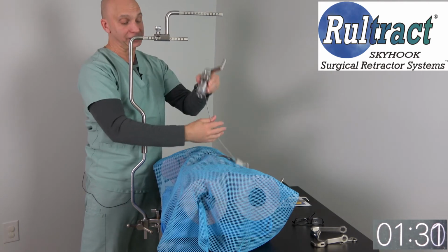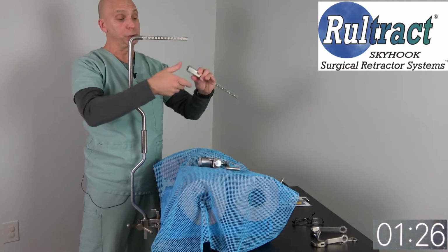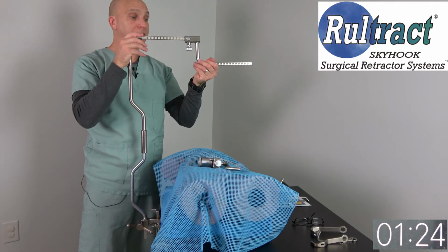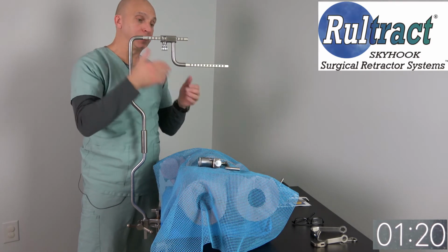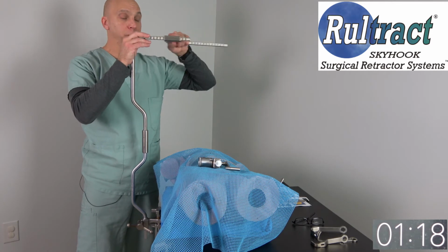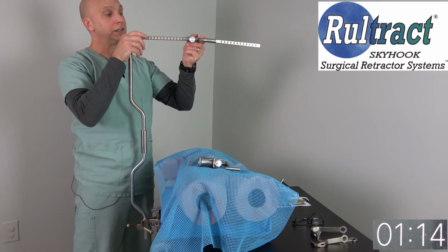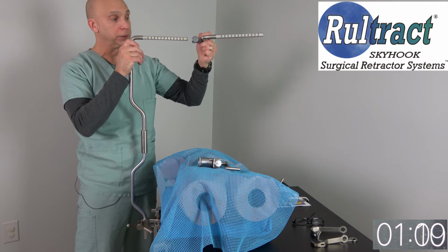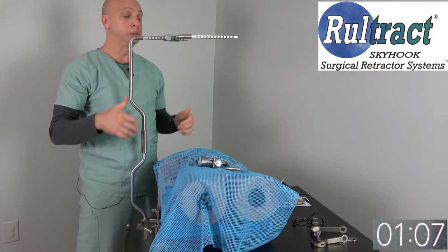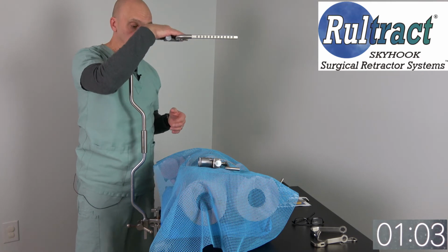The other advantage to the riser is, if you had a very small patient and you needed to get even closer to the chest, you can invert it and it'll bring you down closer to the chest for a small or very fragile patient. The other thing is you can move more toward the head or toward the feet of the patient if necessary by turning it sideways. I know you don't have the best vantage point there, but I believe you understand what I'm saying. So that's the difference between the standard extender bar and the riser.